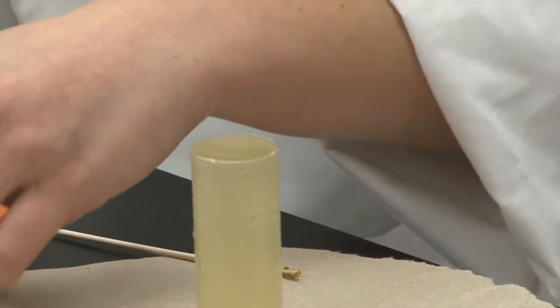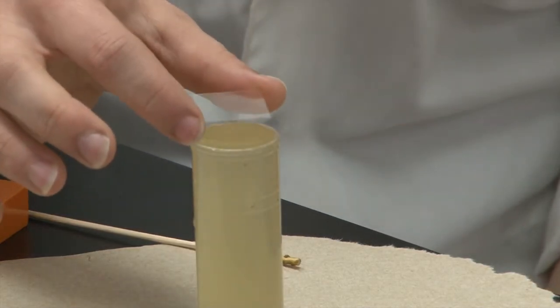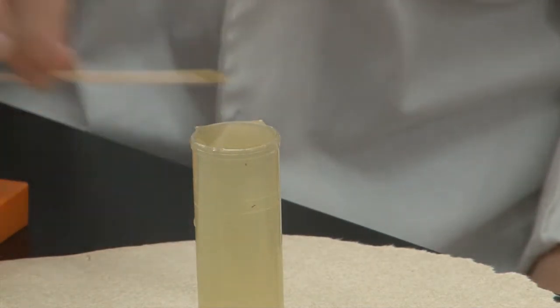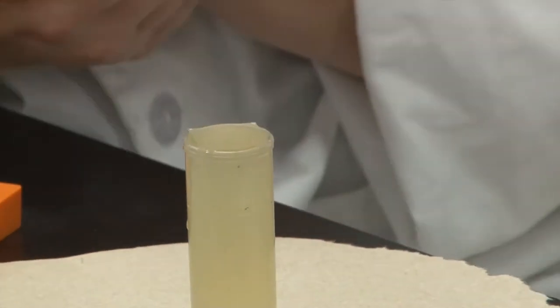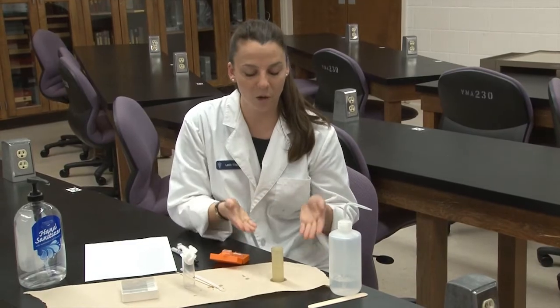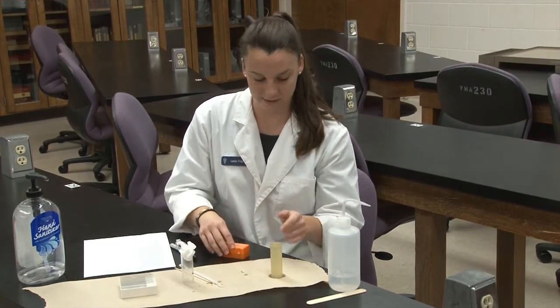With that, you'll take your cover slip, grabbing it by the corners, and place it over the top of your vial. Now you want to wait for 10 minutes, because it takes 10 minutes for any potential eggs in the fecal sample to float up to the top and attach itself to the cover slip.